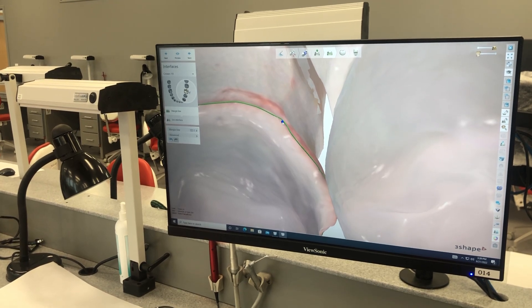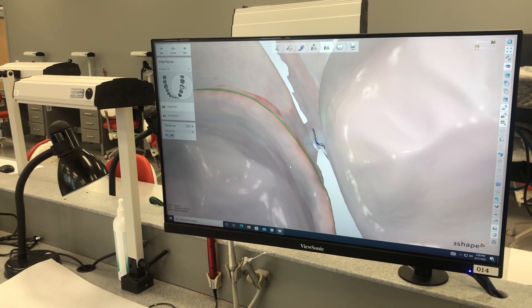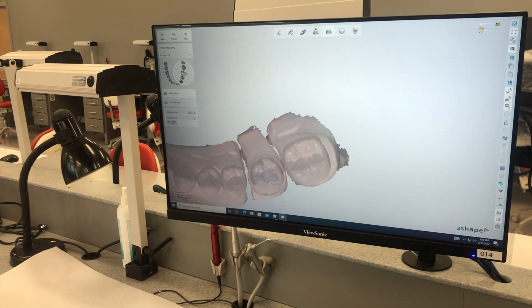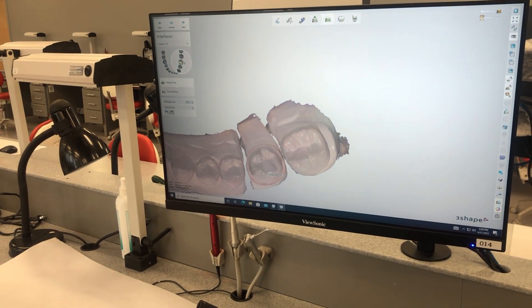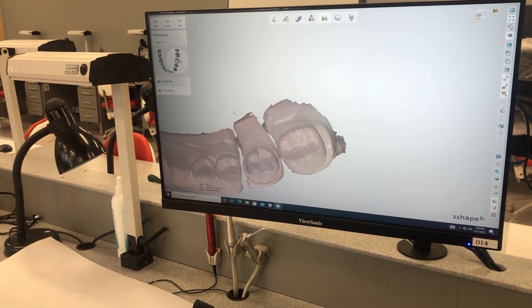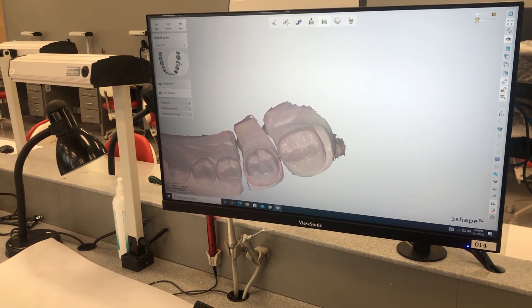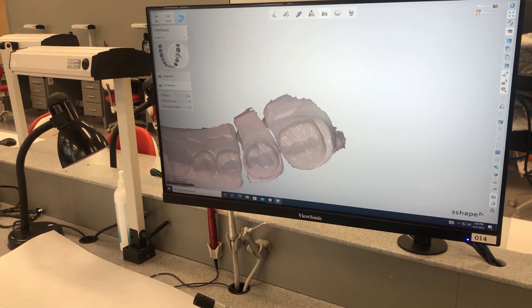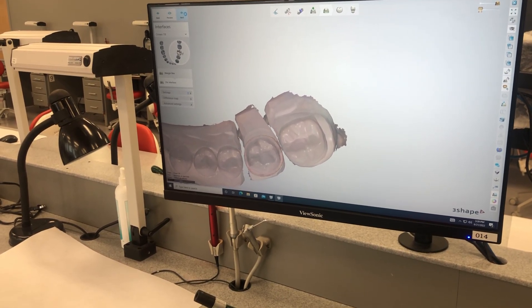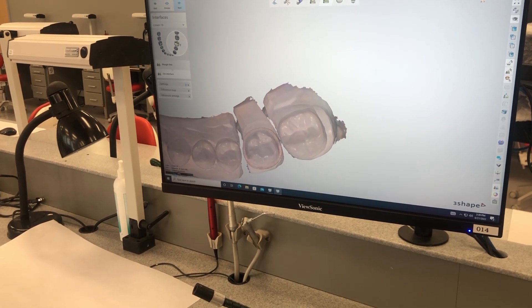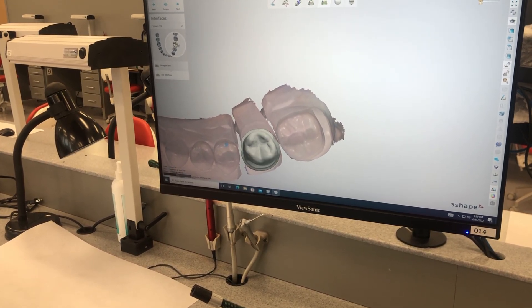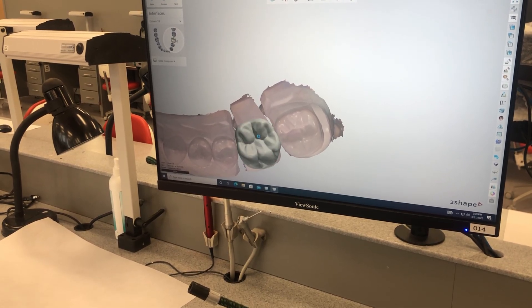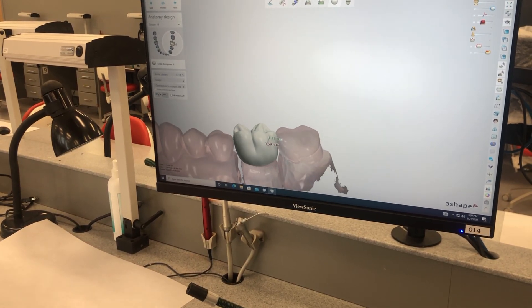I think we're over there too — there we go. So once you've gone around and determined all of your margin directions, it's going to ask you your die interface. We're not really concerned about that part right now, so we'll just go next. And it's always thinking down here in the corner.